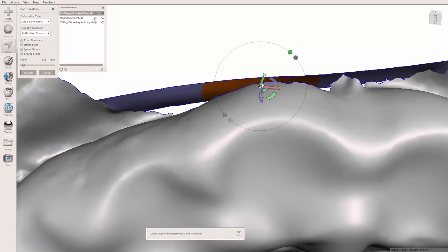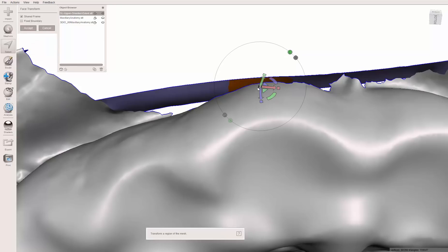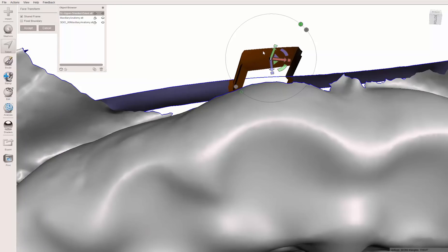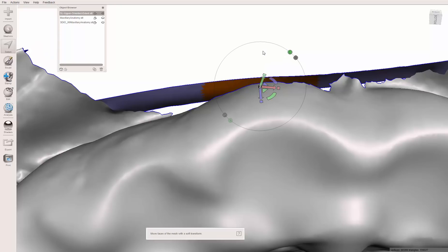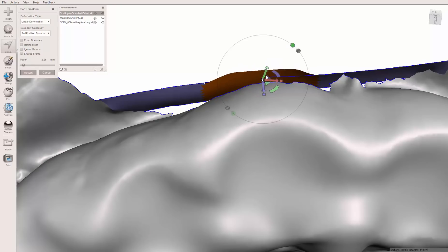So what soft transform does, let's cancel that and just hit T for transform. That's very rigid movement. Control Z. Let's instead hit shift T. And what happens is it's more of a rounded, subtle stretch to it.